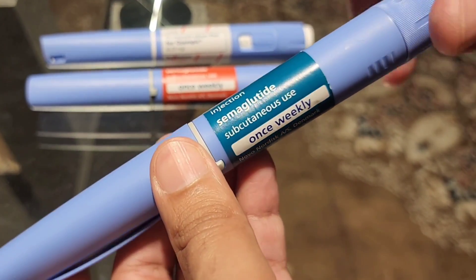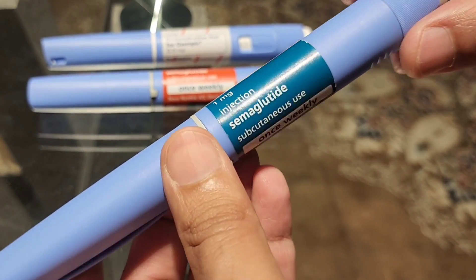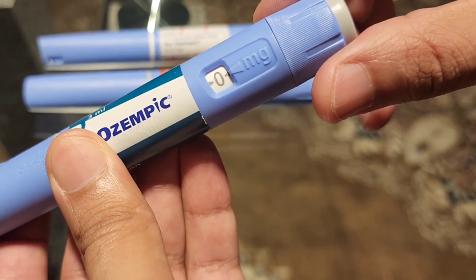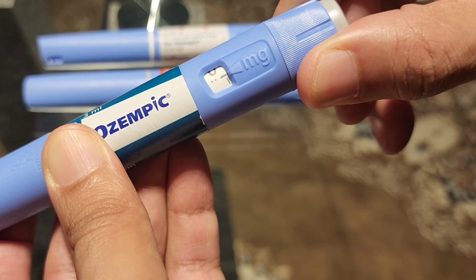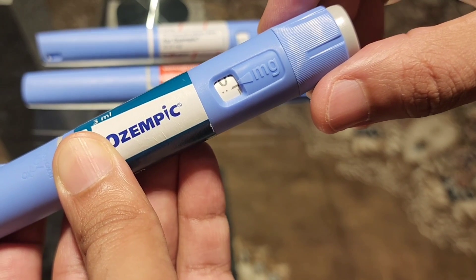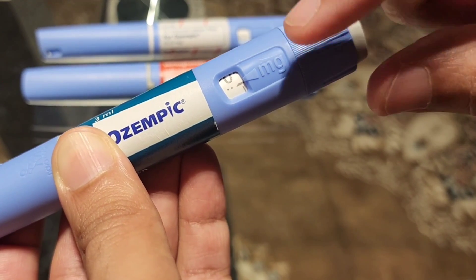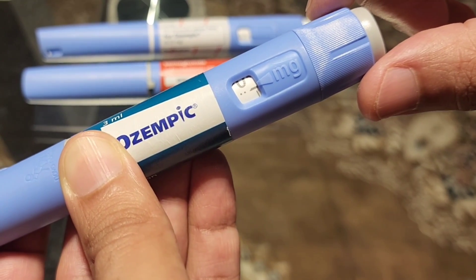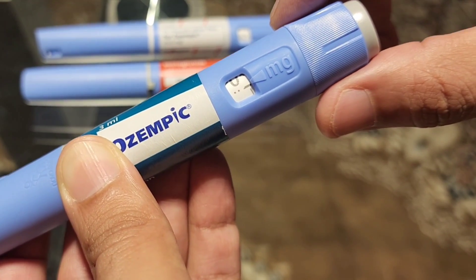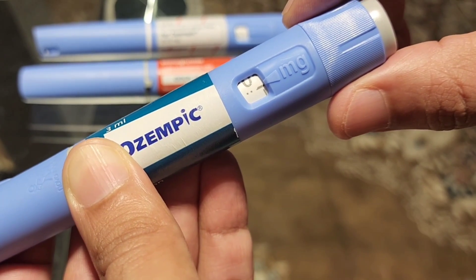This is a 1 milligram Ozempic pen, and from this we can actually give a 0.25 as well as a 0.5 milligram dose. All you have to do is first bring the zero to the initial mark, which is for the test dose, and from there you start counting the number of clicks. The total dose in this pen is 1 milligram, which has been divided into 72 clicks. So you can easily get 0.25 milligrams by counting 18 clicks, and 0.5 milligrams by counting 36 clicks.